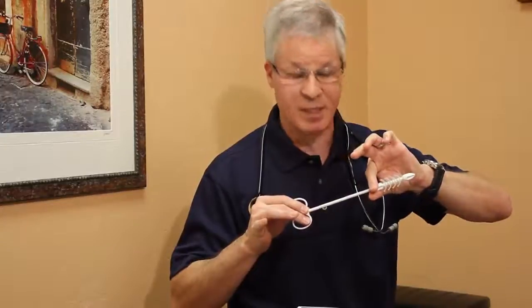Moving a bit more proximally, you'll see that there's a reverse bullet point, and that's so that as the device is withdrawn, it helps to dilate the anus and allow the device to be easily removed. Moving to the proximal end, you'll see a large church key handle, and that serves a few important points. The first is that it allows us to manipulate the device in a very easy manner. It also provides good tactile feedback so that you'll be able to get a feeling for where the device is within the patient and the fecal load. And lastly, because of the wide diameter, it prevents the inadvertent loss of the device into the rectal vault.